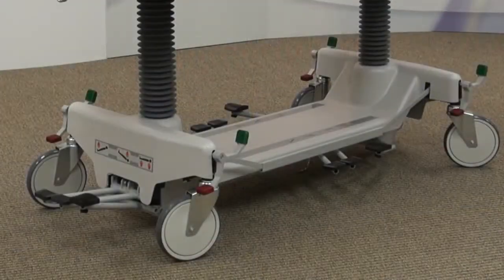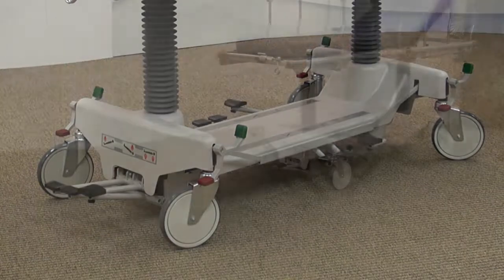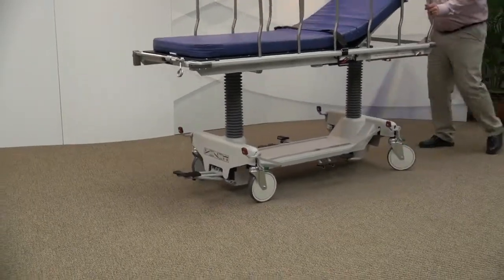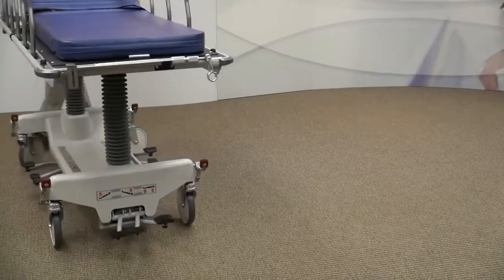The Fluorotrack Stretcher is designed with a low-profile trimmed base to create an excellent window for C-arm access. There are pedals located on all four corners of the stretcher, allowing control from any position. Engaging the green pedal will lock the left foot end casters, allowing for smooth steering and turning. Four 8-inch Tente casters allow for easy movement and tracking, even on carpet.